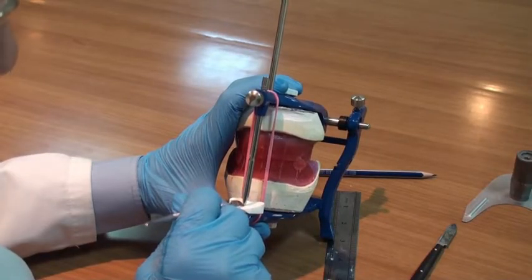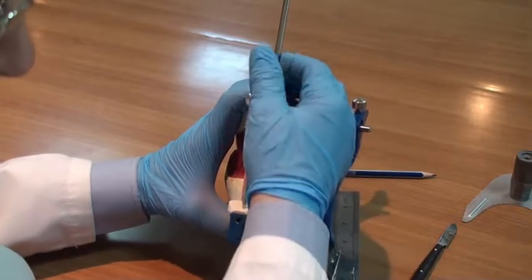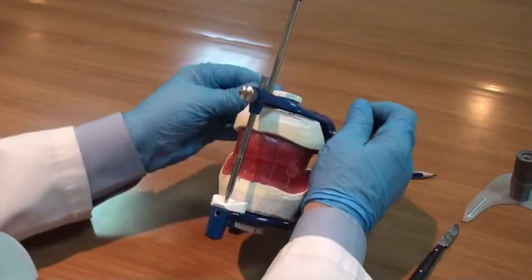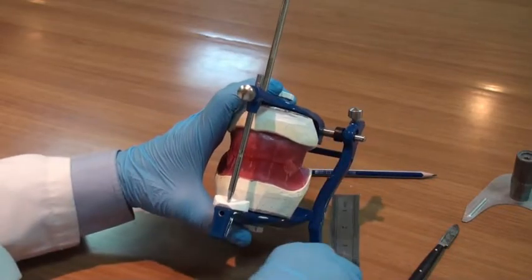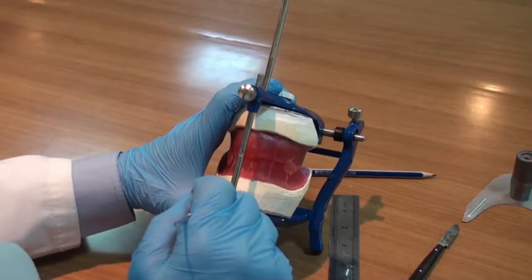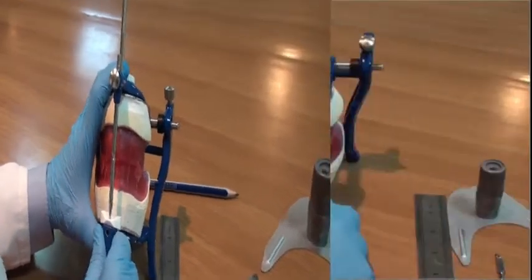at the articulator, and this can be observed by the absence of separation of the incisal pin during incisal movement. The incisal pin will not cause any separation between the incisal pin and the incisal guidance table, as we are going to demonstrate during setting of the lower anteriors.